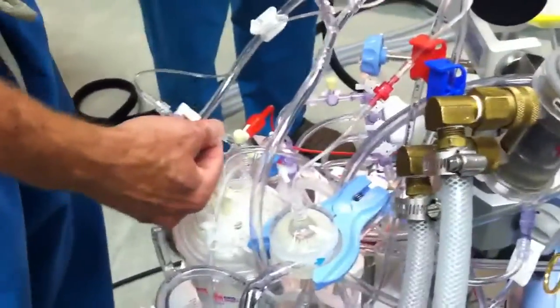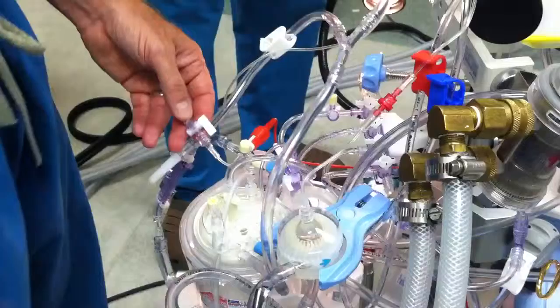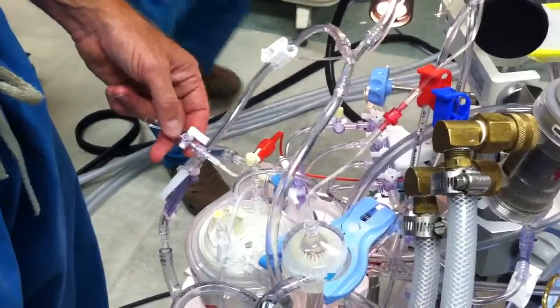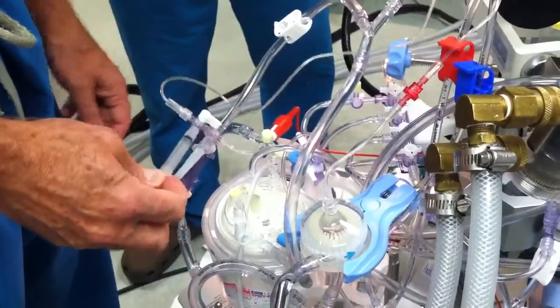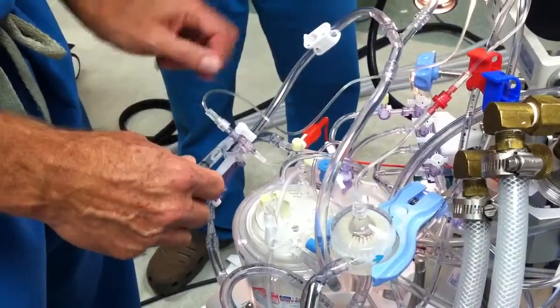Not much flow. No. Even when I was... we got a hundred millimeters worth of pressure. Can you give me a stopcock? Three cc syringe? There's still not a whole lot of pressure — there's a hundred millimeters on there. We'll see. So what are you doing, just pulling fluid back? Let's see if it's going to work, see if it'll drop through it. It comes through it.